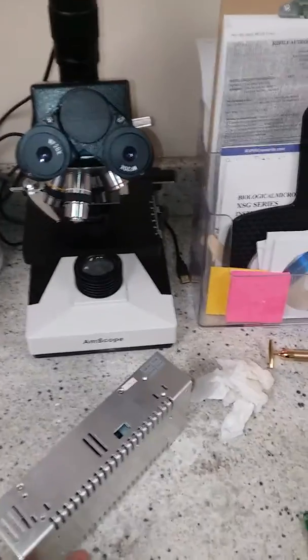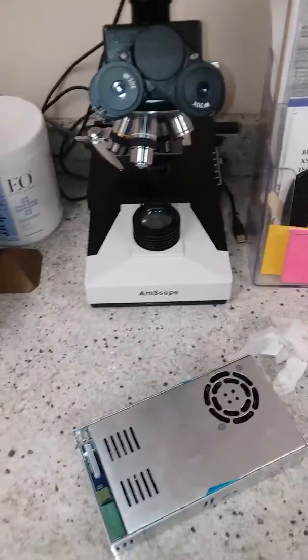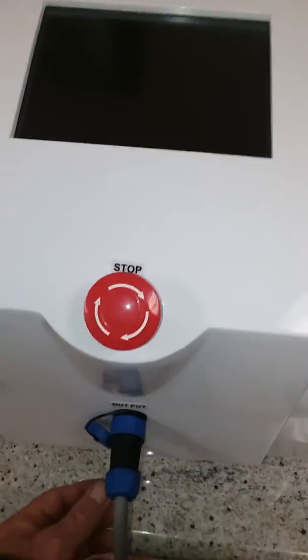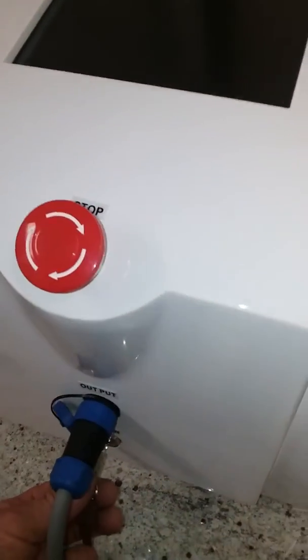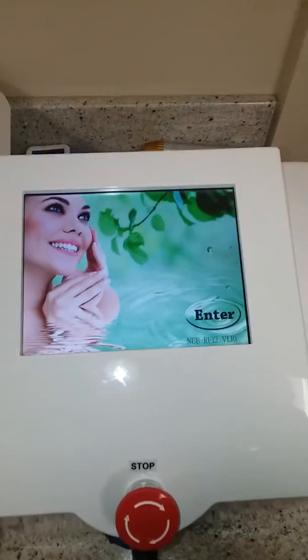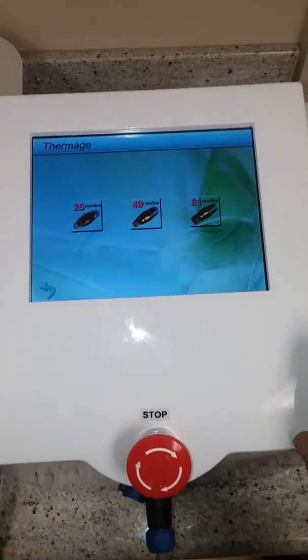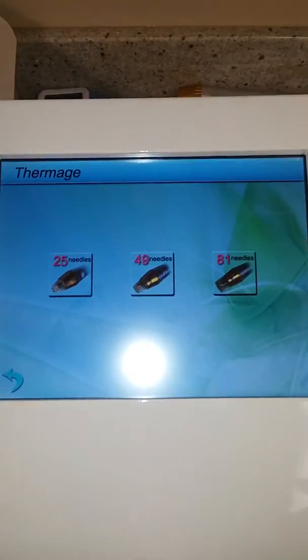Here's an RF deck of a different kind — the kind that causes RF burns to people. Just replace the RF deck, this control board, and it goes into this machine here, which we turn on with the key. Most of us hate getting burned by RF, but with this thing people actually pay money.